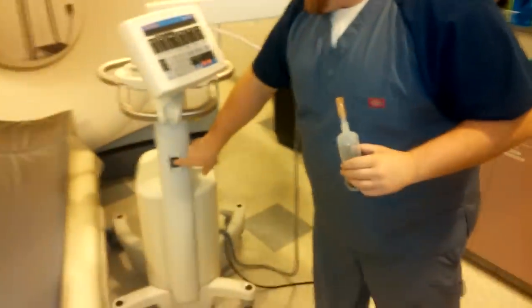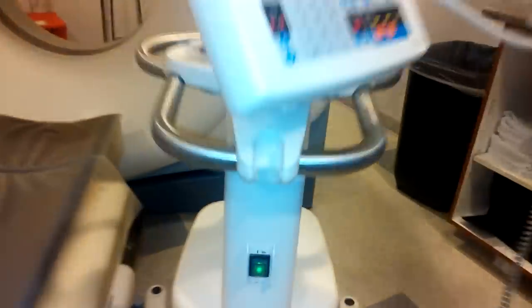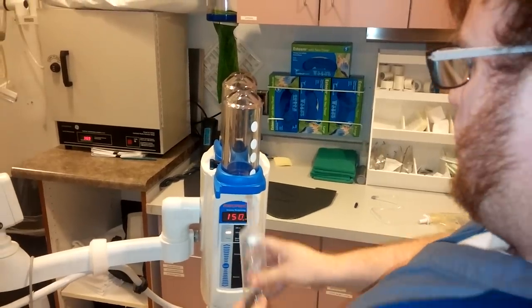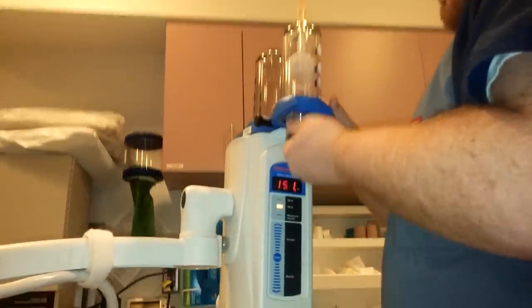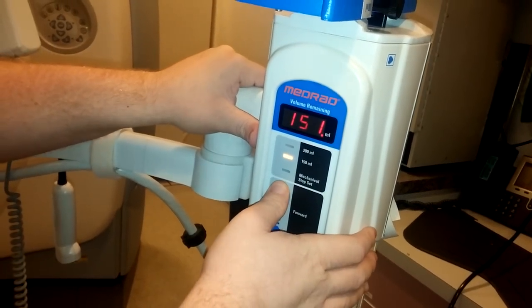We're going to turn it on here like so, get the syringe right out of here — it flies right up in here. Perfect, and you fold it over. Then you hit enable and we're going to push all the air out.